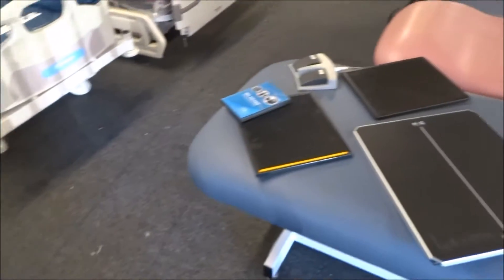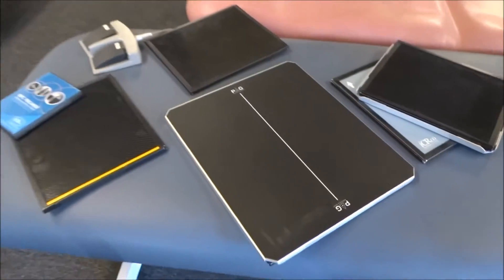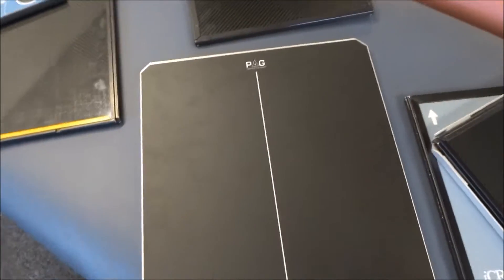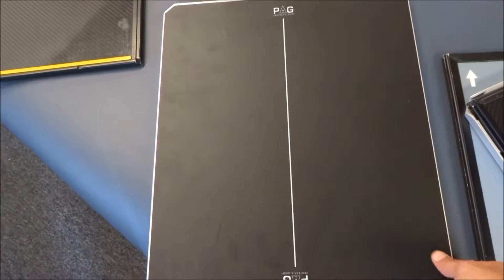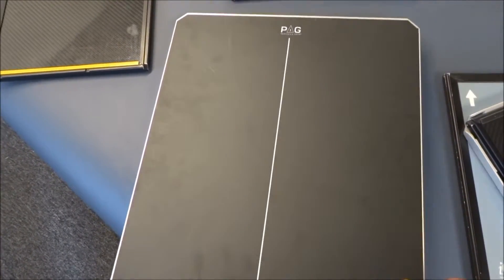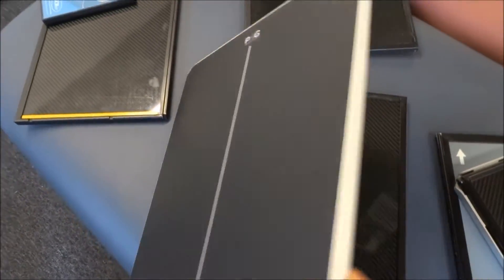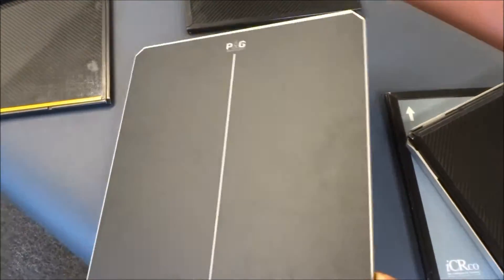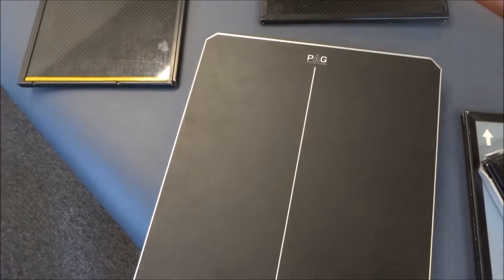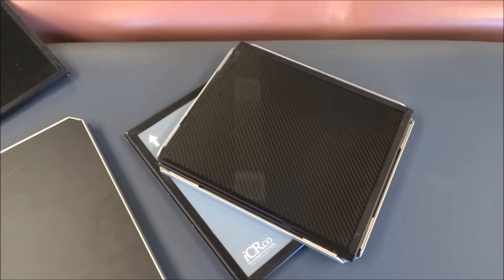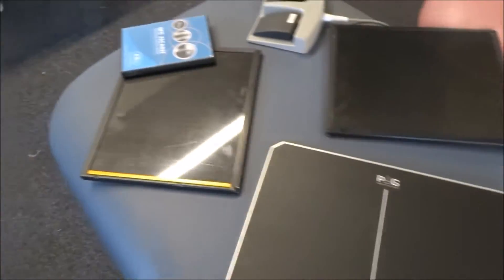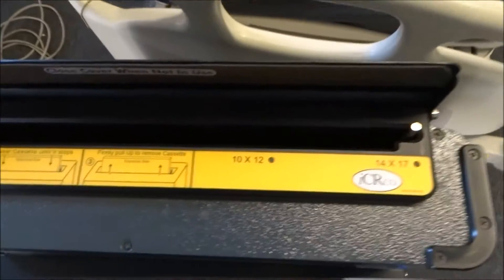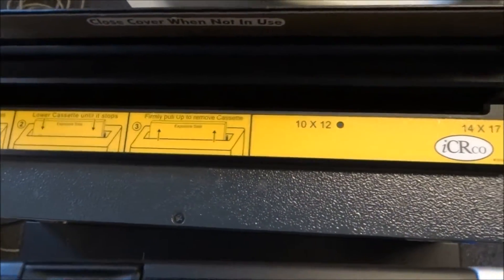Basically what happens is that you start first with the cassettes here and this will be how it'll be done with say doing a chest x-ray and then you actually have the actual cassette right there. You've got two different sizes and depending on the size of the x-ray you're going to go ahead and put it right into this processor.